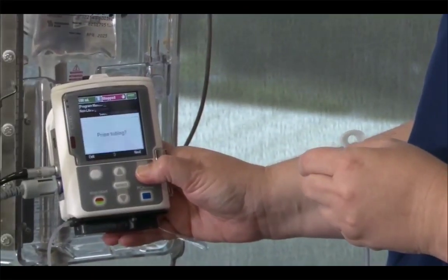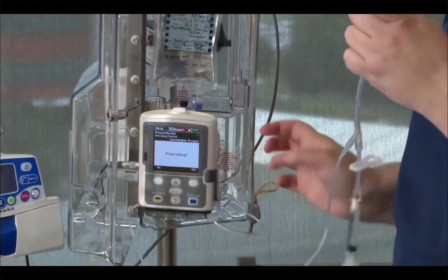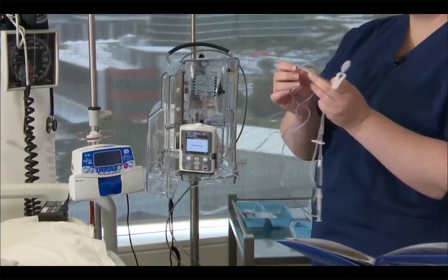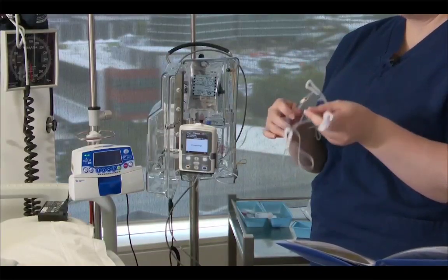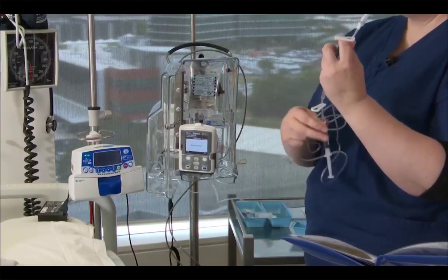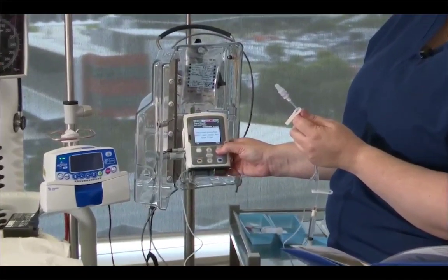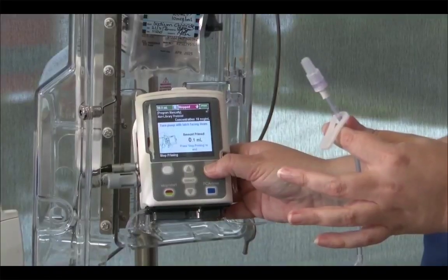And then next, prime the tubing. So at this point I need to unclamp my large clamp at the end and unclamp my clamp on my small end. But I leave the side arm clamped. So 2 on the main line unclamped, side arm clamped. So pressing prime, yes. Open the clamps, disconnect from the patient and press prime.